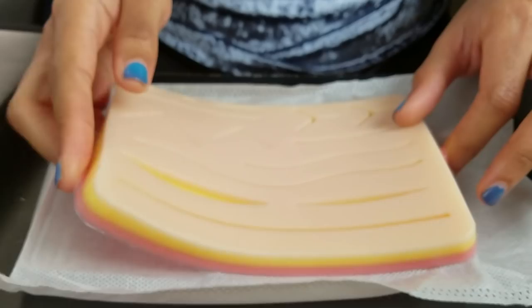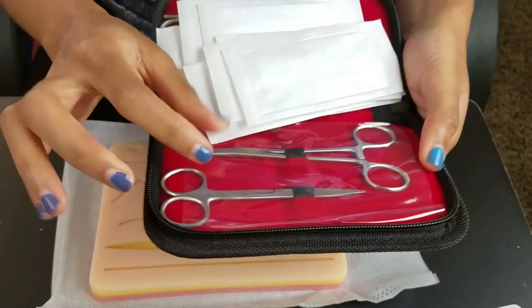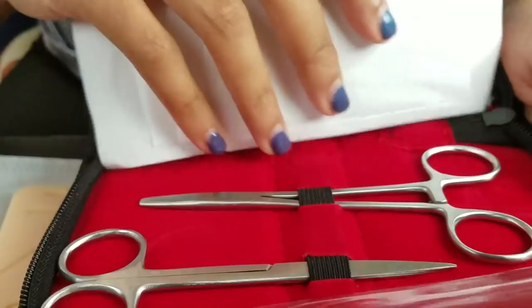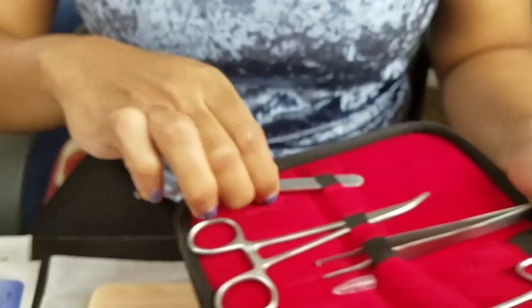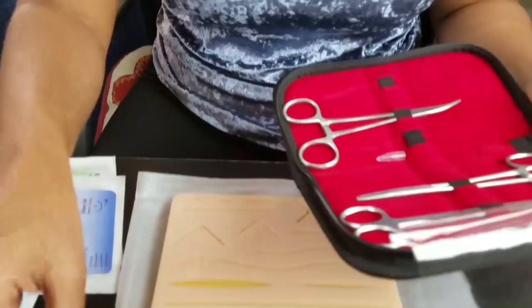This is the kit that it comes with. It will hold all your sutures. So it has scissors, a needle driver — that's really nice. It's velvet. They've taken time to make sure this looks really good. We have some forceps here, rat tooth forceps, and then this slot is actually for your scalpel. I don't need a scalpel since it's already pre-lacerated, but if I want to go a little deeper into the deeper layers I can make the hole a little larger so I can do like a subcuticular stitch.